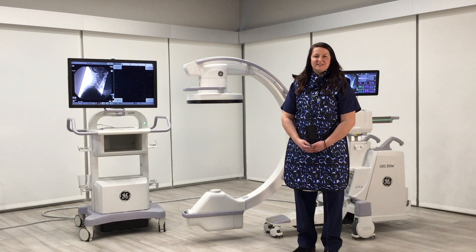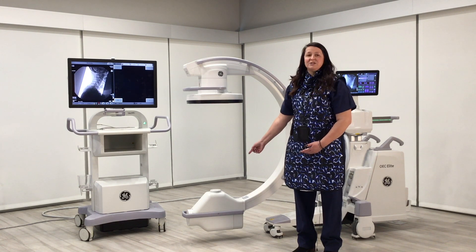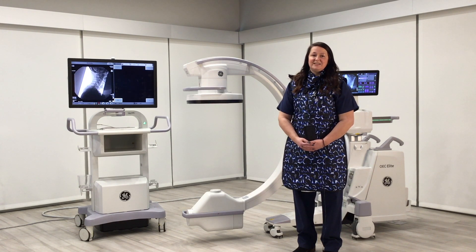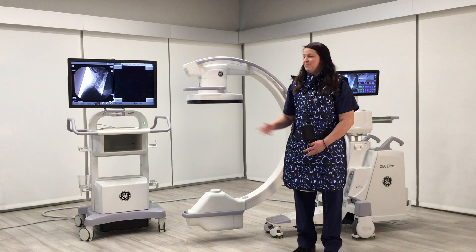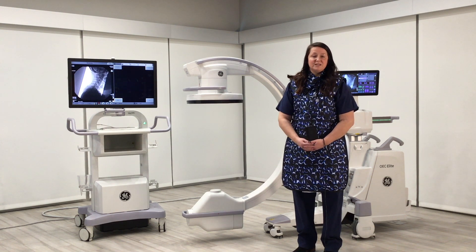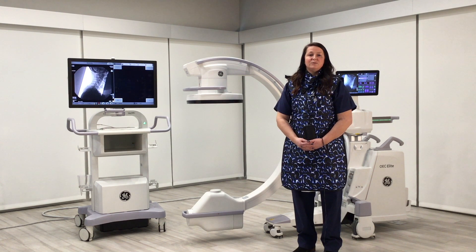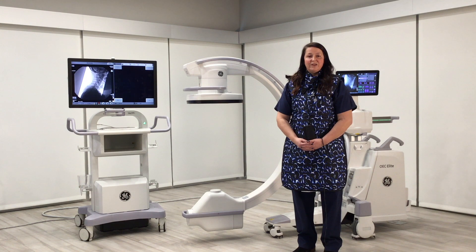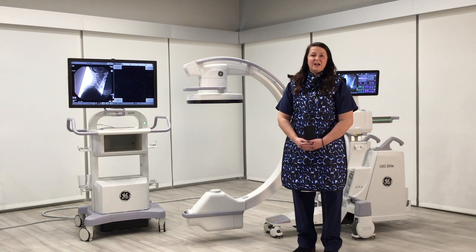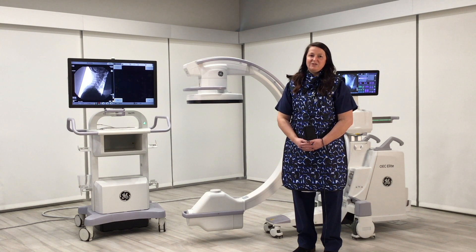When positioning the C-arm, ensure that the x-ray source is at the bottom and that the detector or image intensifier is at the top, closest to the anatomy of interest. This will not only improve image quality, but it will reduce scatter radiation and the dose to the patient.